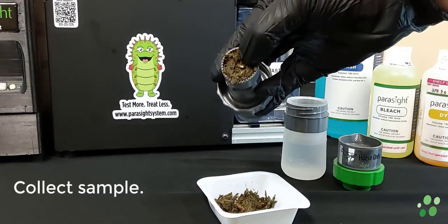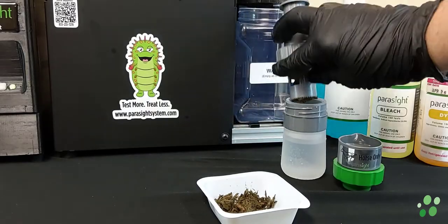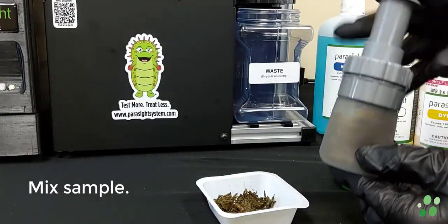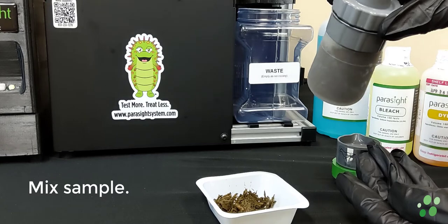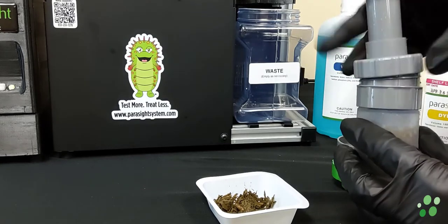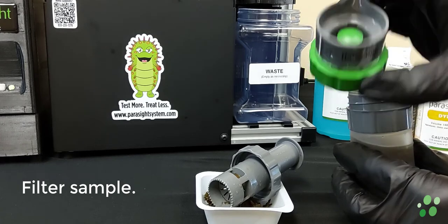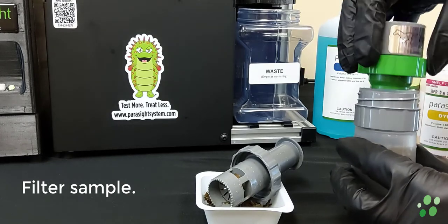Using a fresh equine sample, fill the sample collector tool. With water filled to the line, add the sample. Mix the sample thoroughly. Remove the plunger cap. Replace with the filter cap. Agitate the bottle and dispense a pre-measured amount into the lid.